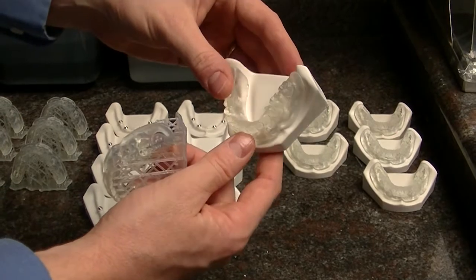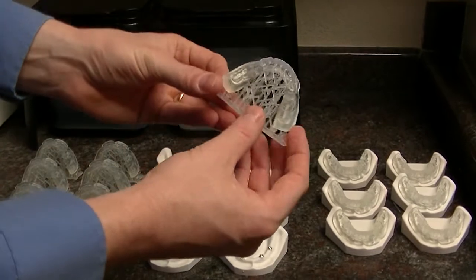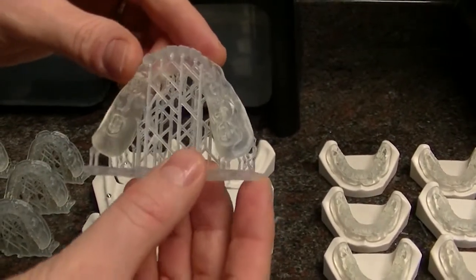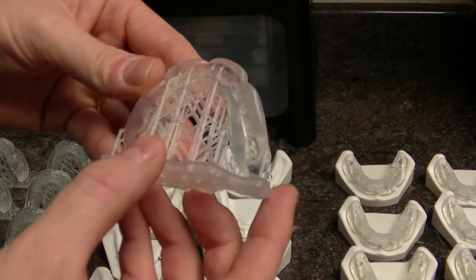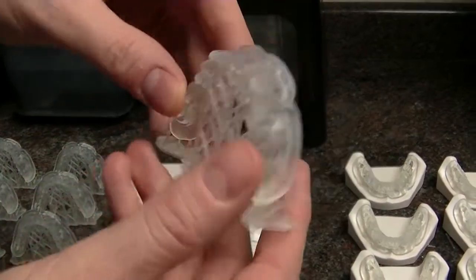As you can see, it fits on this white model very nicely. When I design my supports effectively, I've got them designed so they're in the least amount of impact area — nothing on the intaglio or the supporting structure — but you do have to put a couple right in this area, just on that overhanging area.